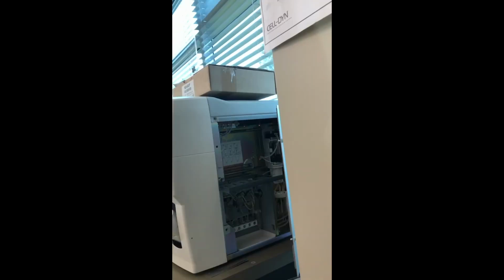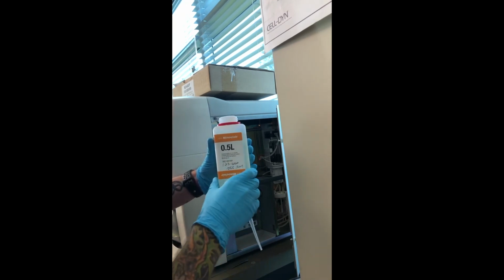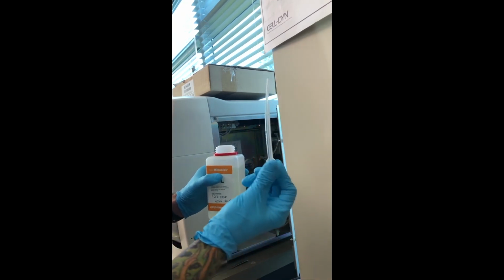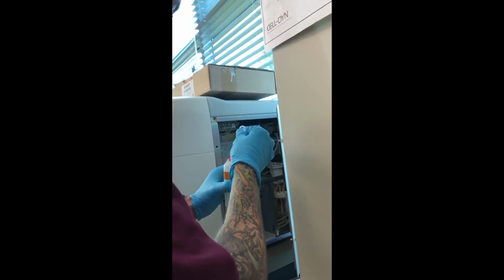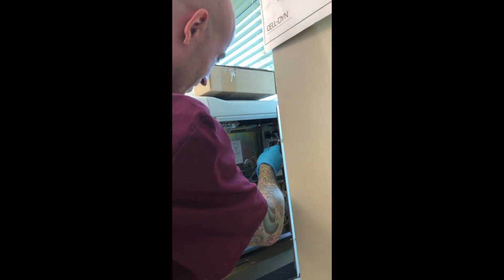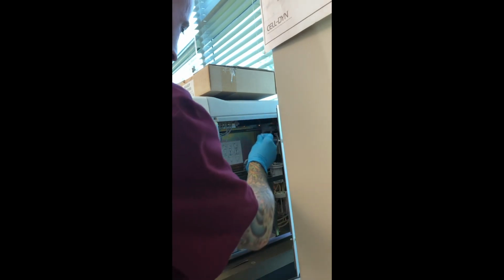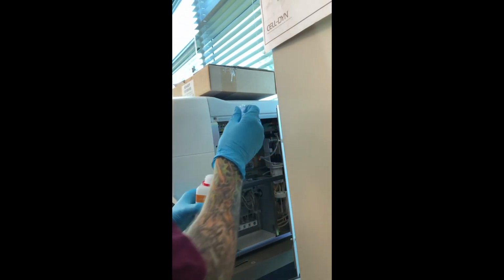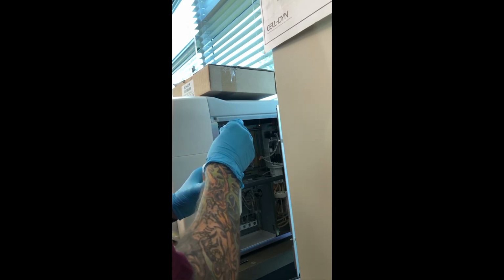And I'm going to go ahead and do that. Now we're using the ABX Pentra. We're going to use just a pipette and make sure you get it into the chamber and fill each of the 5 up. And these pipettes, they should take about 2.5.